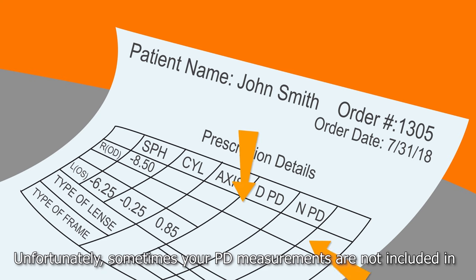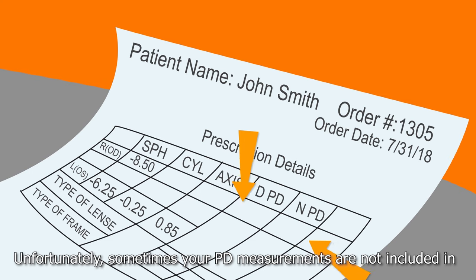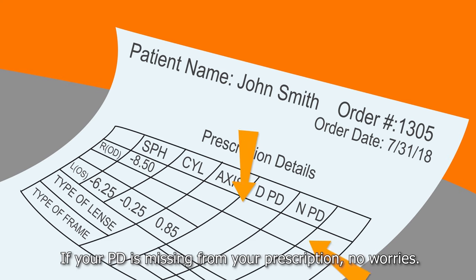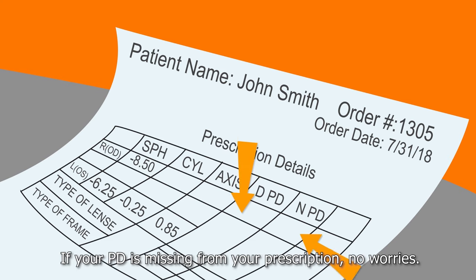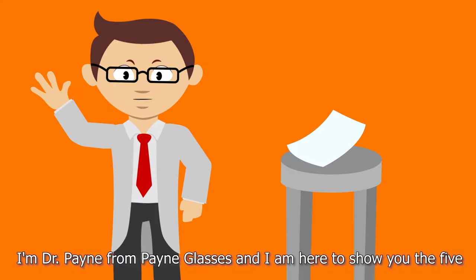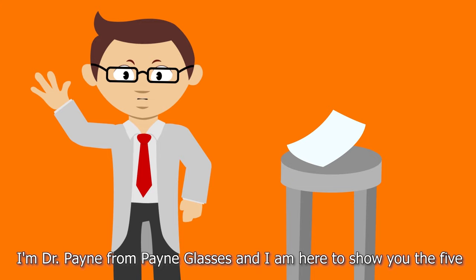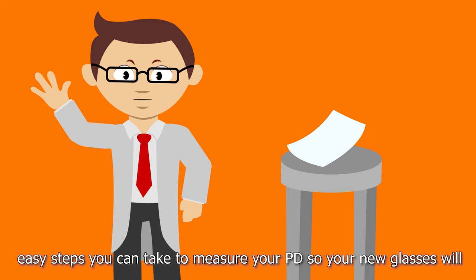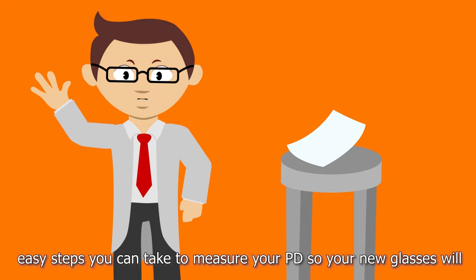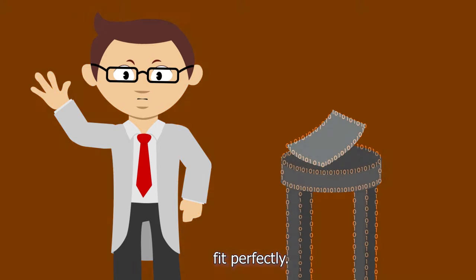Unfortunately, sometimes your PD measurements are not included in your prescription from your eye doctor. If your PD is missing from your prescription, no worries. I'm Dr. Payne from Payne Glasses, and I'm here to show you the five easy steps you can take to measure your PD so your new glasses will fit perfectly.